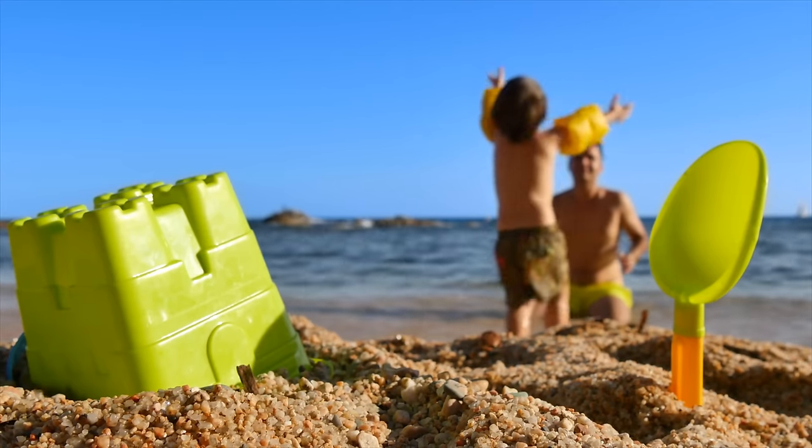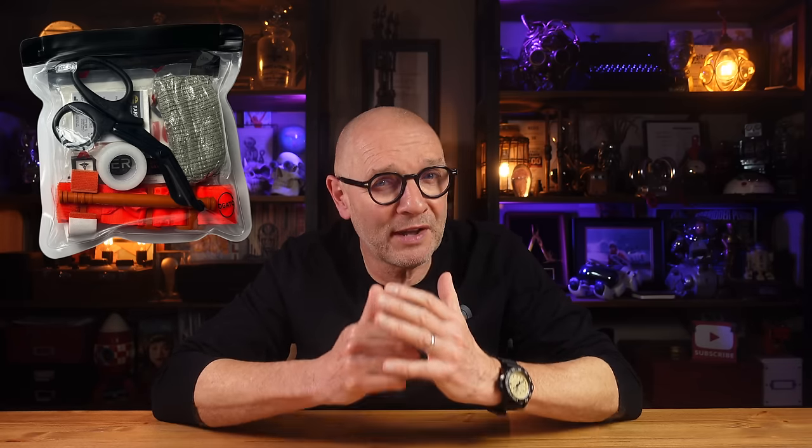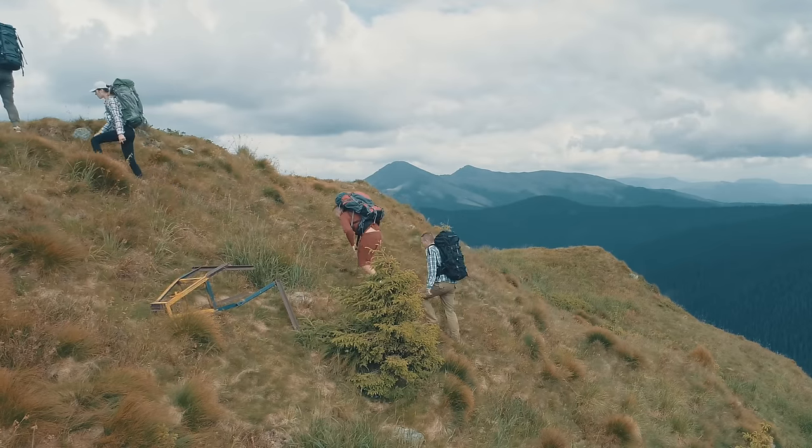My plan is to create a first aid kit in two halves. One half to deal with day-to-day minor issues — a compact and lightweight kit that can be used independently, that I can throw in my bag for lower-risk activities such as going to the beach, day trips, and that kind of thing. This is actually something I already have, although I've taken the opportunity here to update it. And another half for adventure travel and outdoors, where the risks are greater and help is harder to find.